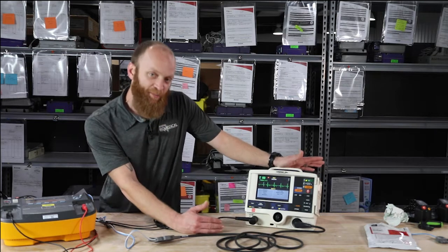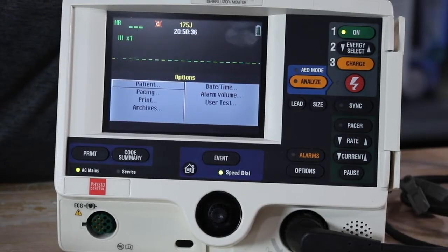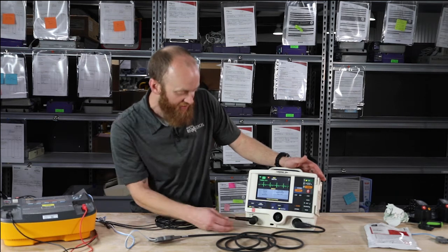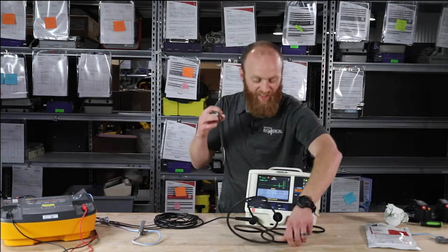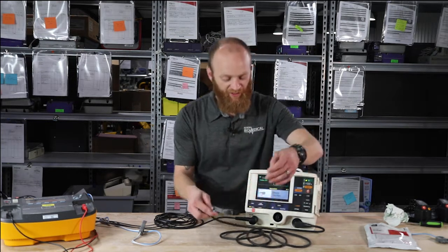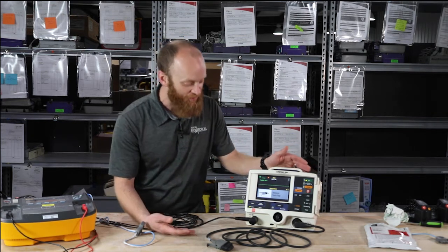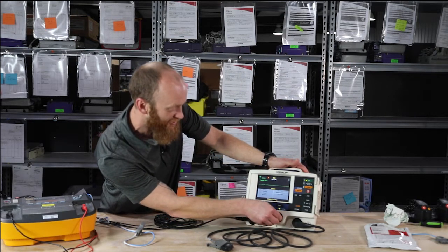Under options, you can enter patient data, change the time and date, set your pacing defaults, and print the code summary. To perform a user test on the LifePak 20, hit options, scroll to user test — it will tell you to connect the test plug. Your test plug is zip-tied onto your therapy cable. Plug in the test plug. Note the device is always assuming you're trying to save a patient's life, so if you power it on with the test plug in, it will tell you to remove it to attach your pads. Ignore that message and continue with user test.